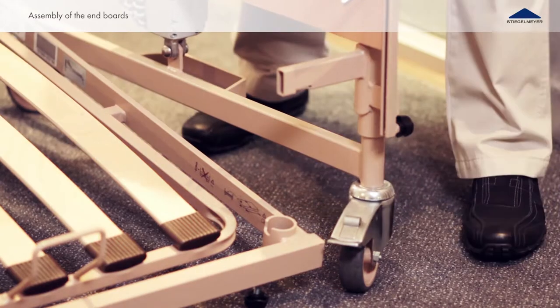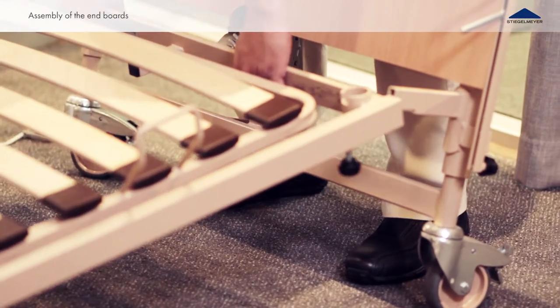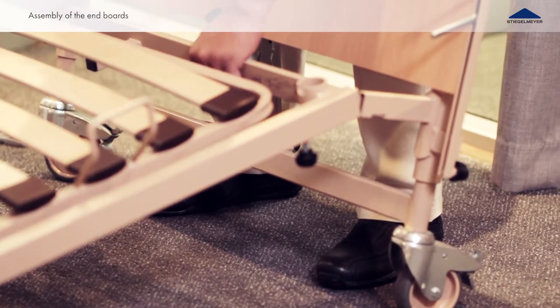Line up the headboard by the head side. Join the head side end board together with the reclining surface.